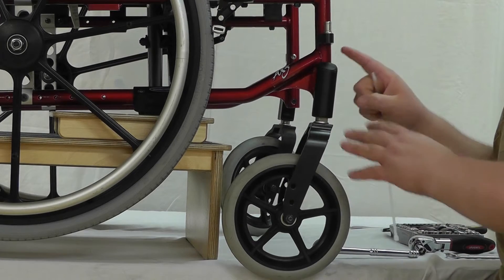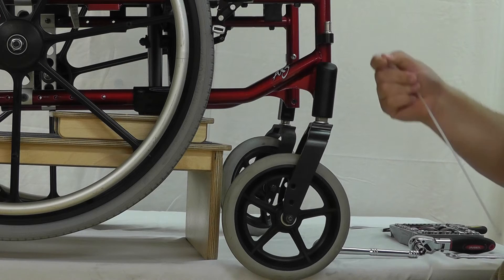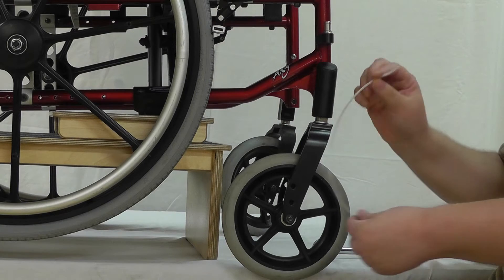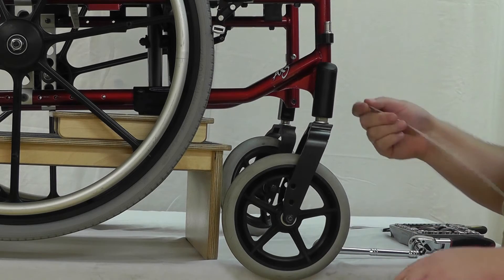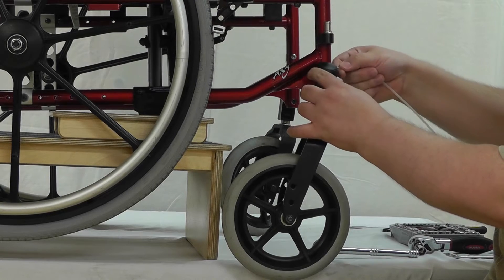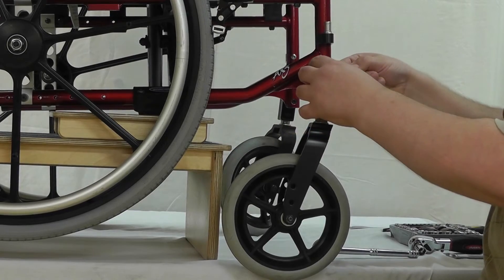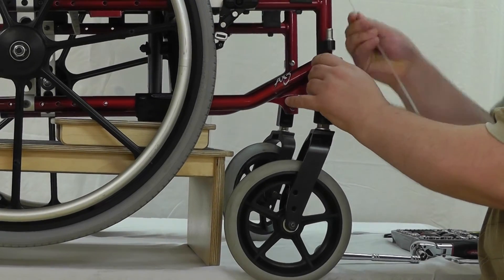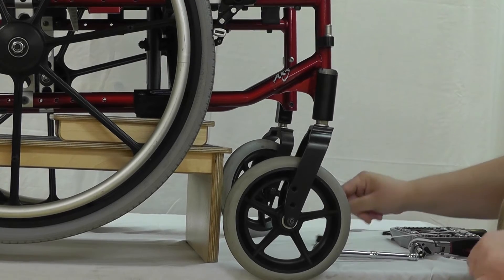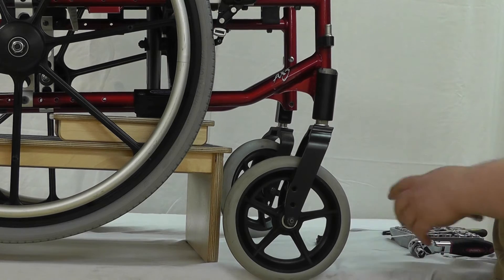We're going to attempt to fix what would be an easy fix for the wobbly wheel syndrome. It's got a cap on it. A safety tie is a wonderful thing for getting under here without marring or scratching your chair — you just slide it through and once you get it out on the other side you can pop it up like that, no problems to the chair itself.